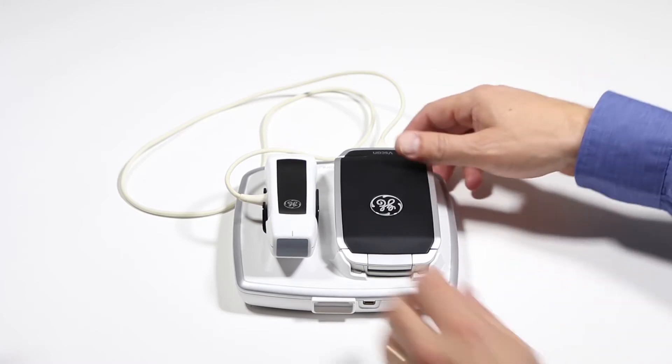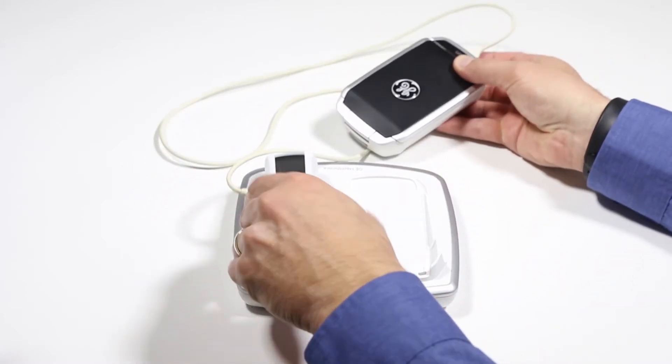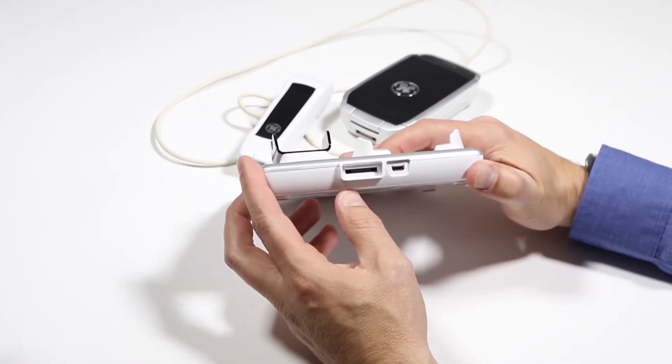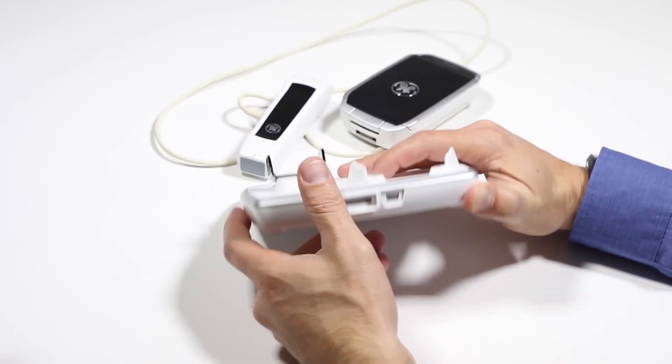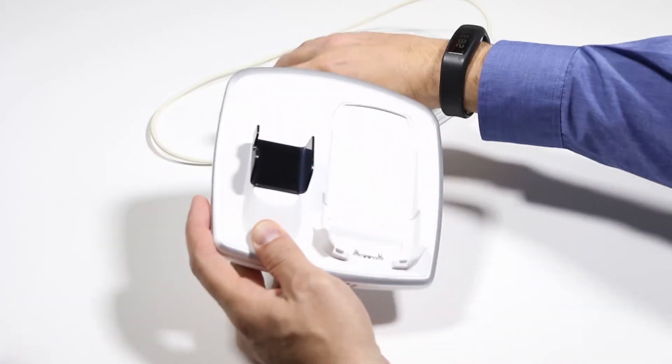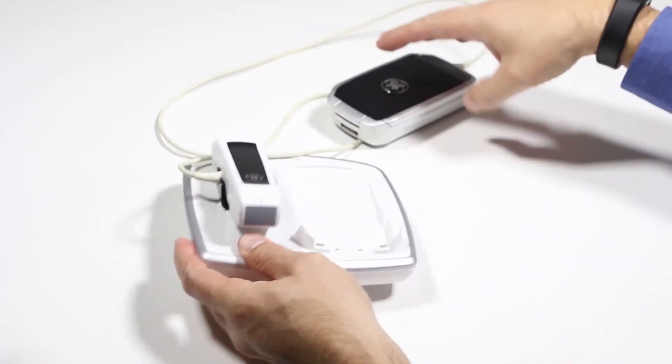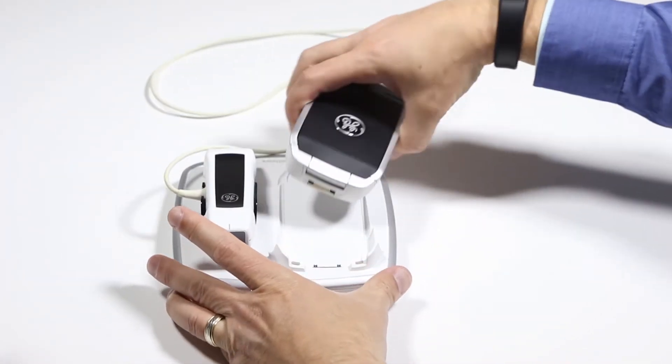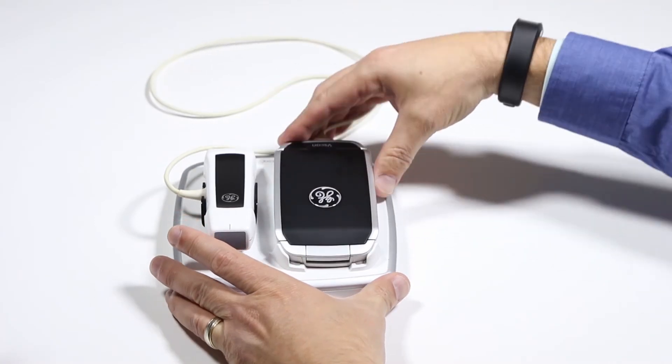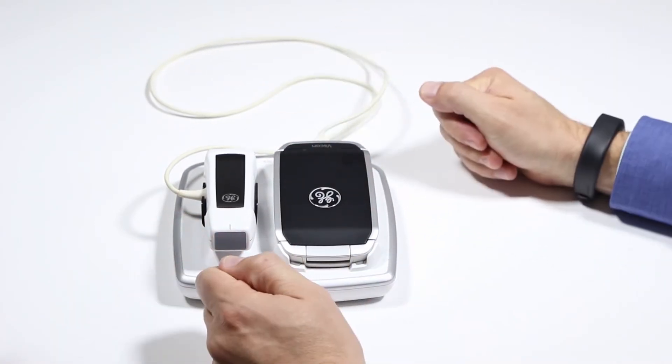Let's take a look at the docking station and the holder. As shown, that's where you're going to put in the power and then you have your USB port there. The probe goes in the probe holder here with the cable going out through that way, and to charge the system you're going to slide it into the dock and attach it just like that.